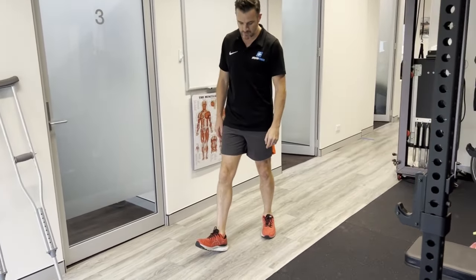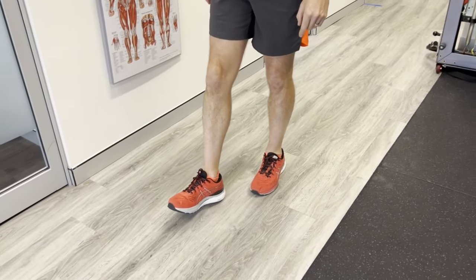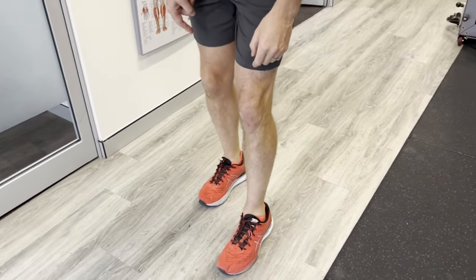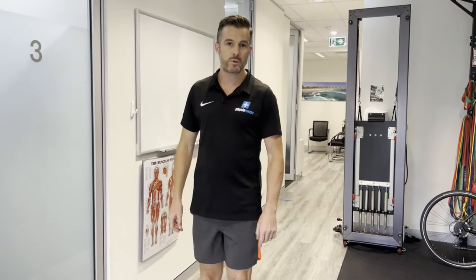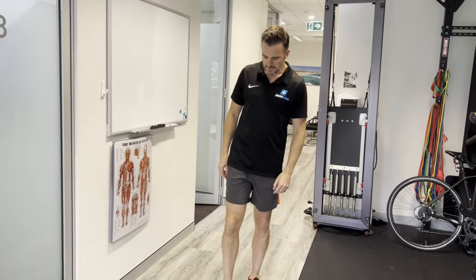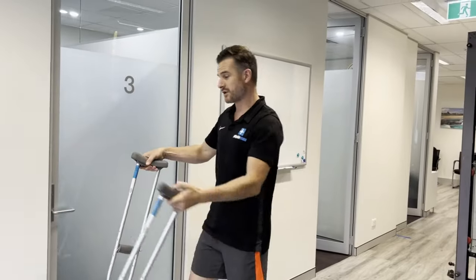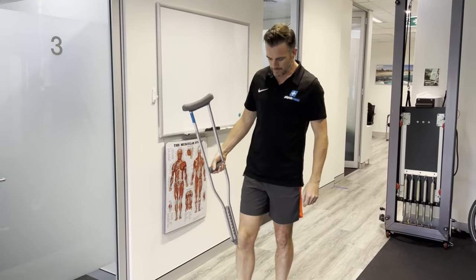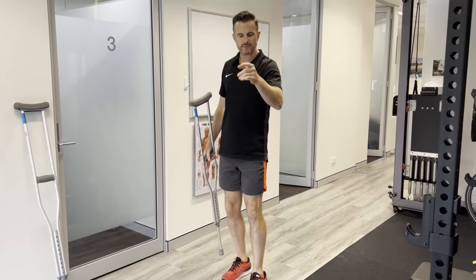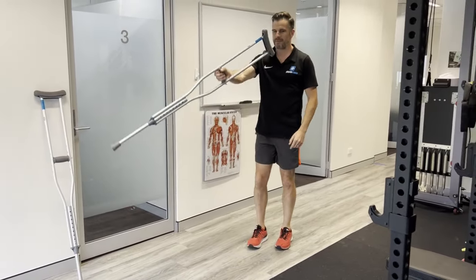You need to land on your heel, roll through, and push off. If you don't take a big enough step you won't complete that push-off phase. That can happen because you've got a stiff ankle that needs work. Some people come off crutches too early because they're sick of them, and they just limp around, creating more of a habit. You may need to go back to one or two crutches if you can't properly weight-bear because it's too sore or stiff.